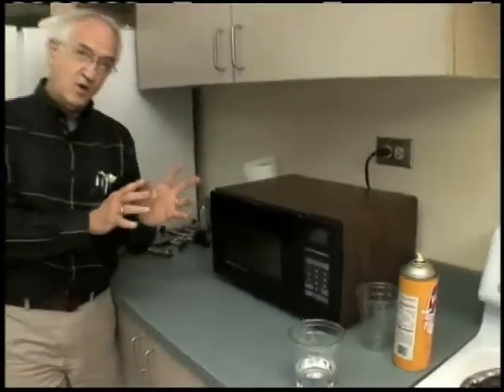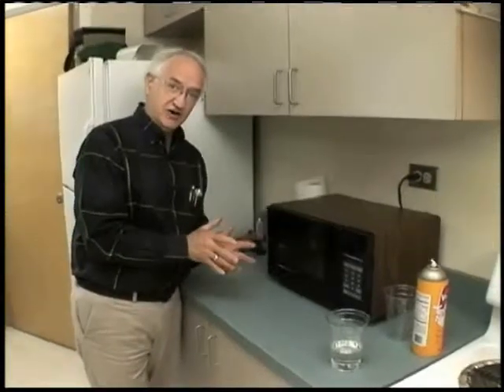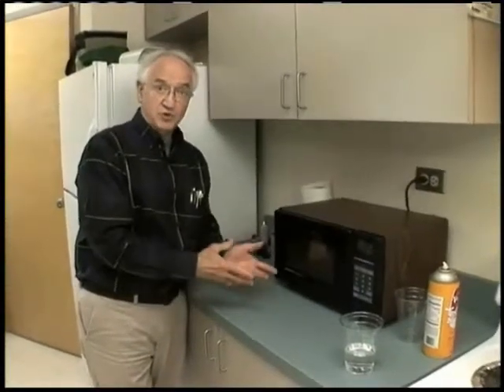There's no magic involved. This is just a way to heat sterilize that syringe with boiling water. While that's cooking, let me talk for a second about how you would clean a metal syringe.